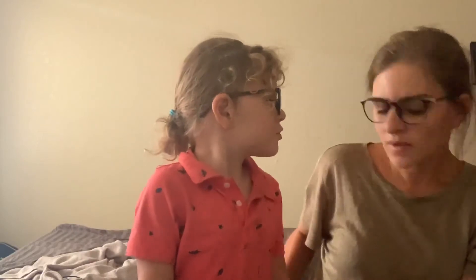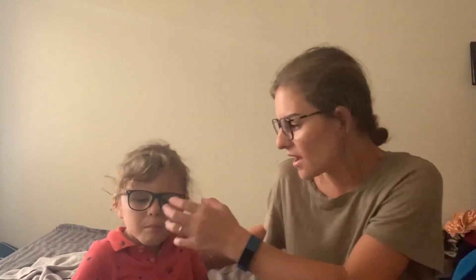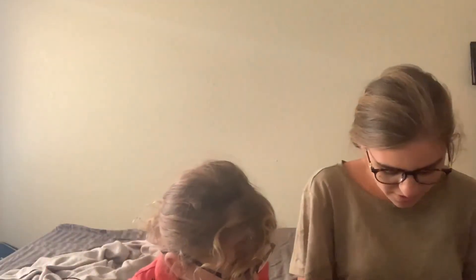He also got the transitions lenses, which we hadn't gotten before, and I paid around $30 including shipping for his glasses. They fit his face quite nicely but are a little big since I went with a 46 instead of a 45, so I do need the temple pieces bent a bit. He's never had a transition coating before, so we'll see how that works.